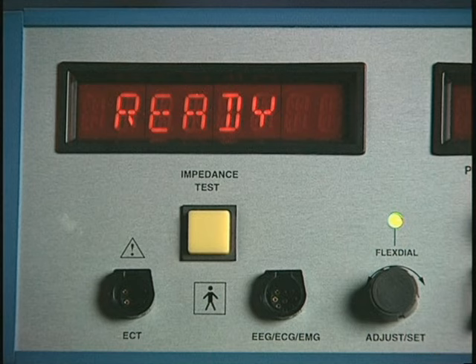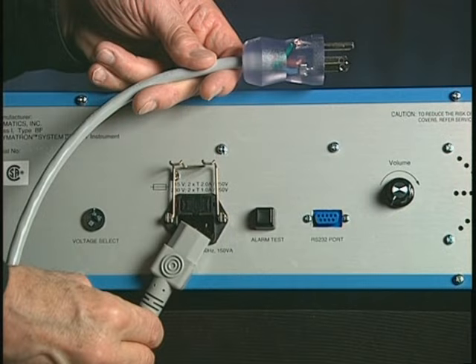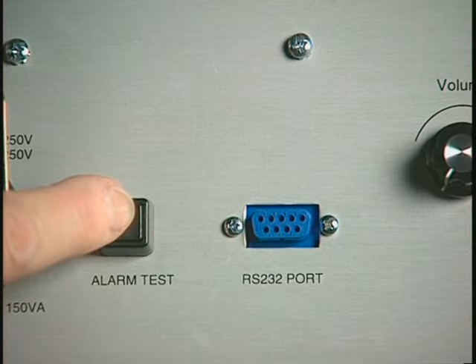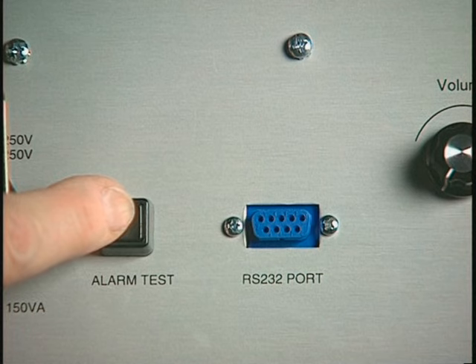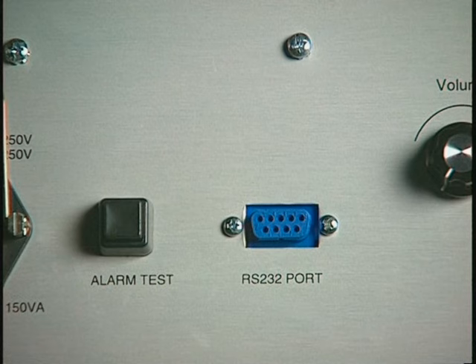The following sample treatment session provides a more detailed sequential illustration of the functioning of the Thymatron System IV in a clinical setting. Be sure the power cable is plugged into a grounded 3-prong hospital-grade socket. The rear panel alarm test button is used to test the safety monitor circuit at the beginning of each treatment day as described in the user's manual.